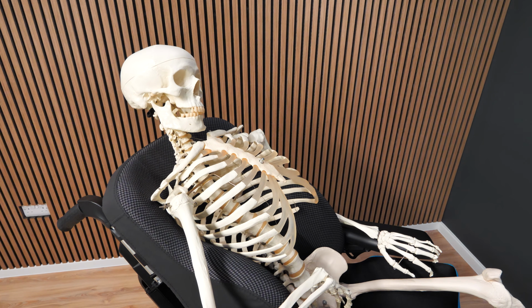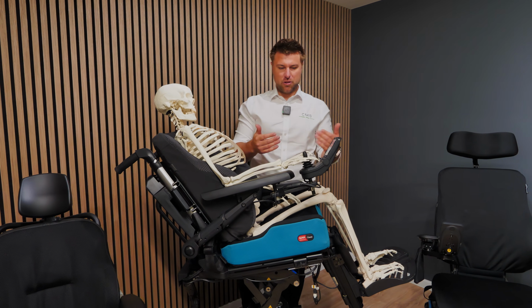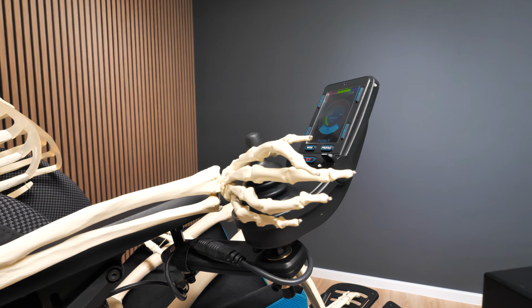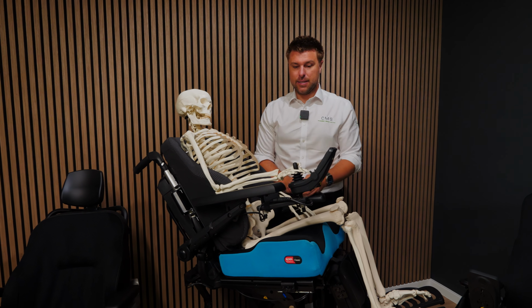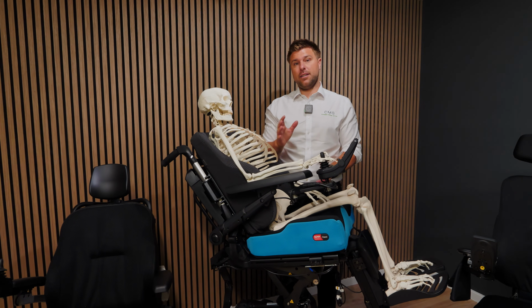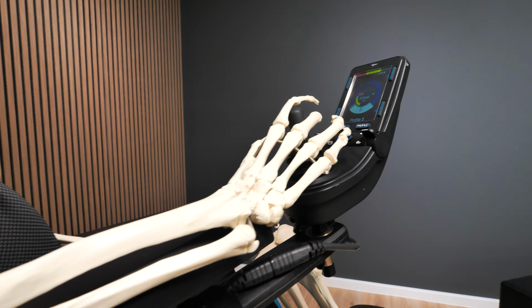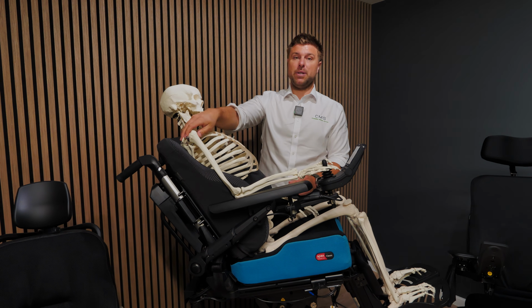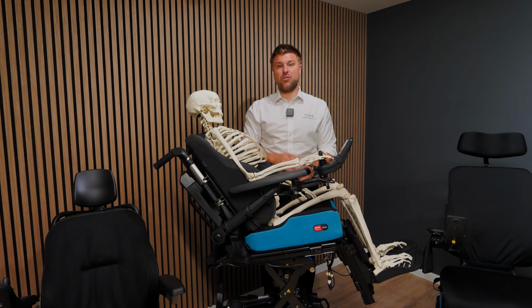The last point we're going to be talking about and considering is the controller position. I'm talking about position both forward and back, and also laterally, so side to side as well. All can have an effect on how you sit in your chair. If the controller is too far away from you, the same thing I mentioned about opening up your backrest angle applies: you're going to be reaching further forward for that joystick, which will encourage rotation. You'll then not be supported, and you will start bringing your shoulders and your head forward because you need to try and see the joystick.